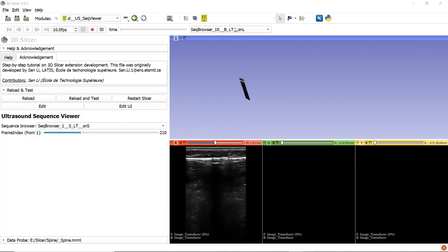If you go to the Sequence Viewer given by 3D slicer, when we change the active Sequence Browser nodes, the ultrasound image did not update. But we can see the update of the time slider. This is not as user-friendly as our custom module.